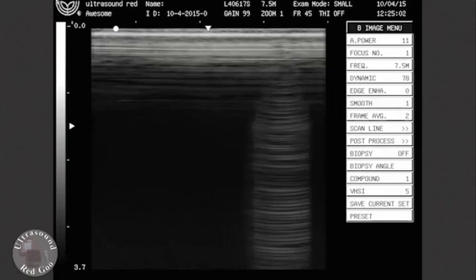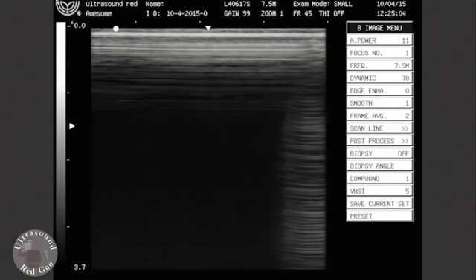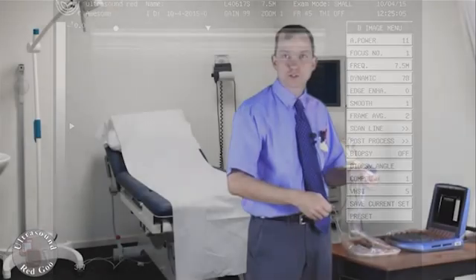And as I see, this probe is in pretty good shape. That's because I just bought it and I've had it since it was built.